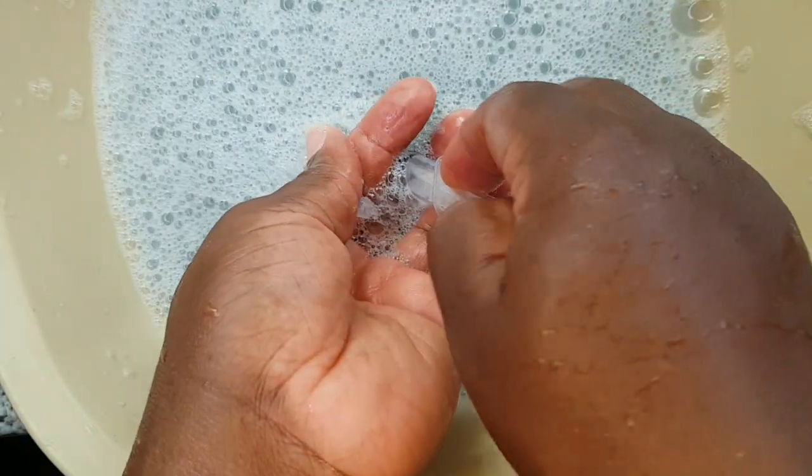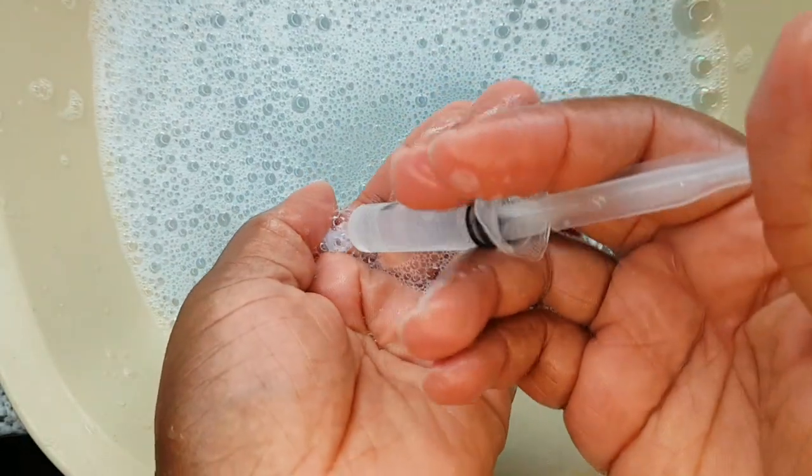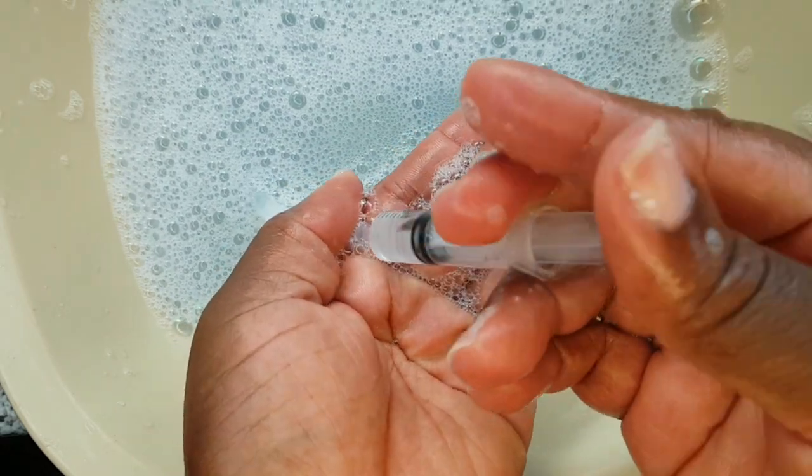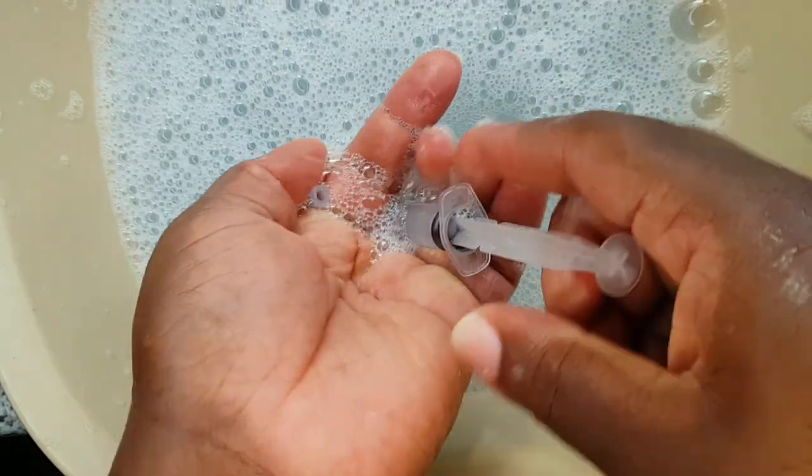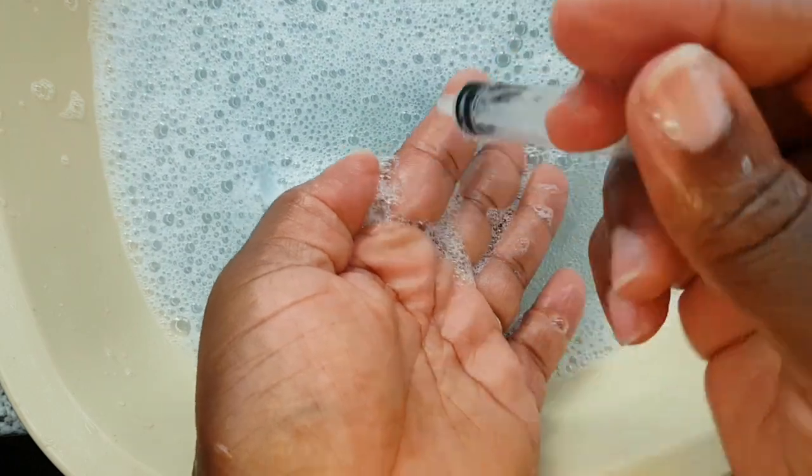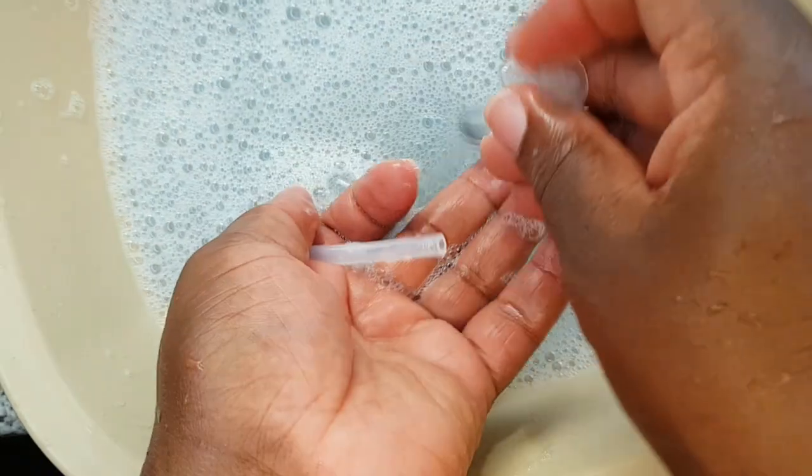One thing I wanted to point out is that you should always read the manual of your breast pump just to make sure that you are fully aware of how your parts are supposed to be cleaned and sanitized the right way.